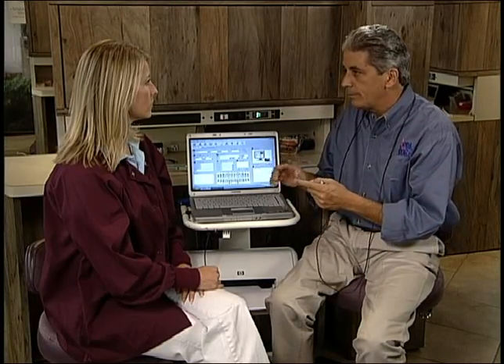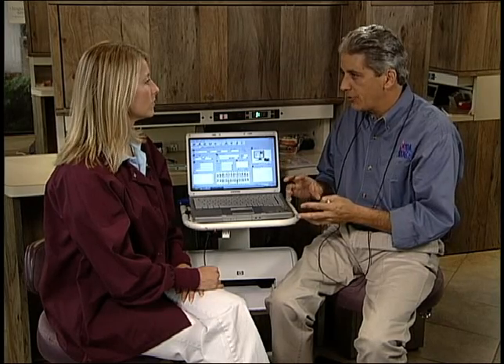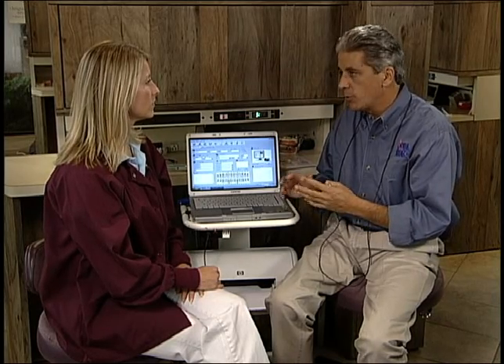So let's recap. Step one was to launch Florida Probe and identify the patient. Step two is to conduct the periodontal risk assessment.